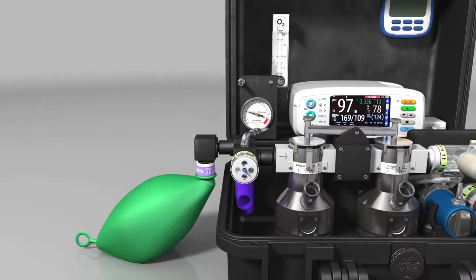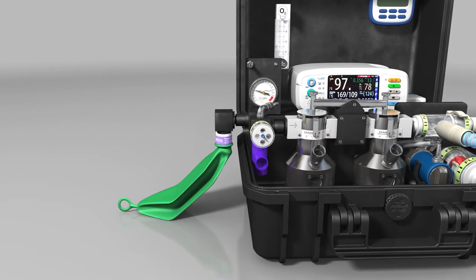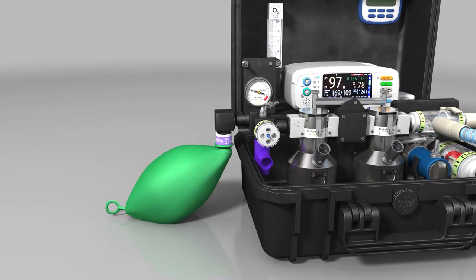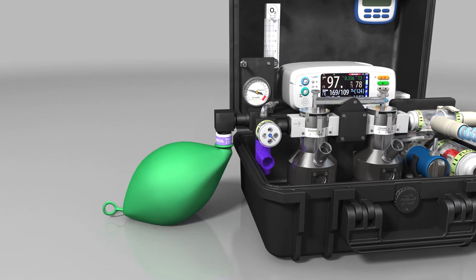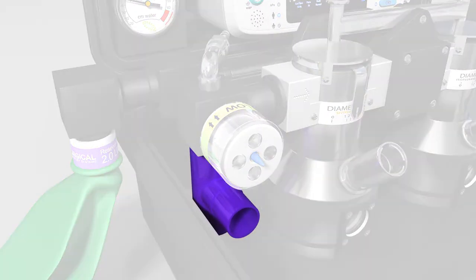If the level of oxygen supplementation is less than the patient's minute volume, the bag will empty. If the oxygen supplementation is increased, the bag will fill and the circuit will become continuous flow. The overpressure valve on the reservoir block avoids excessive pressure in the system.